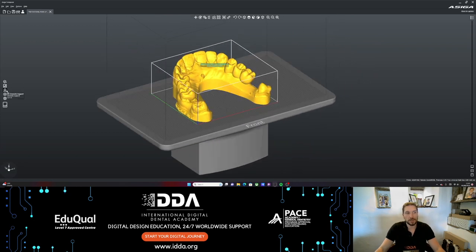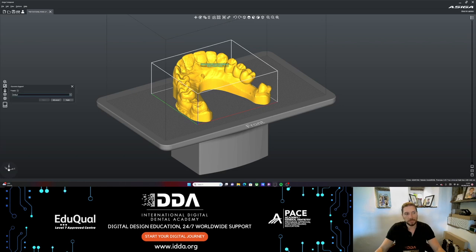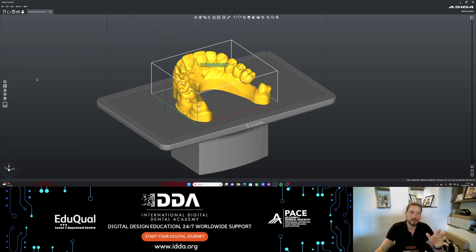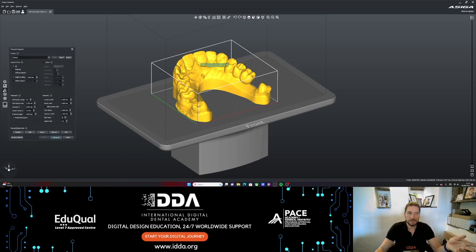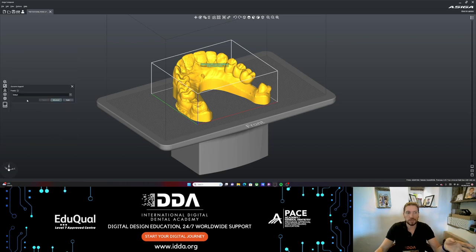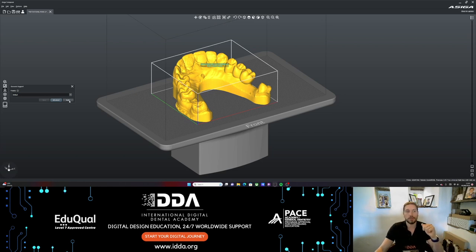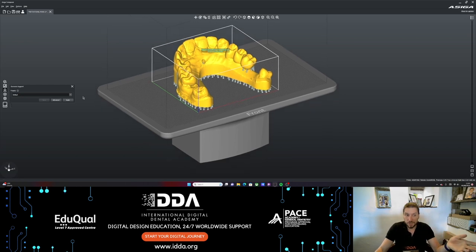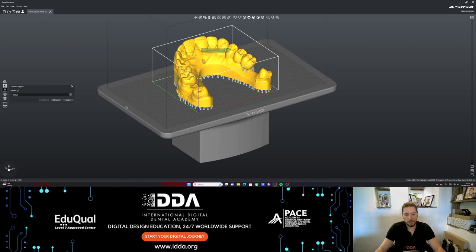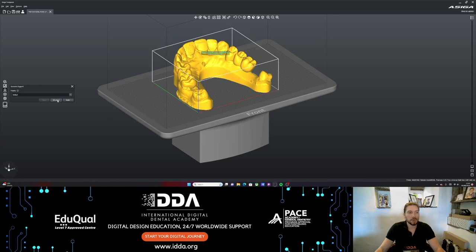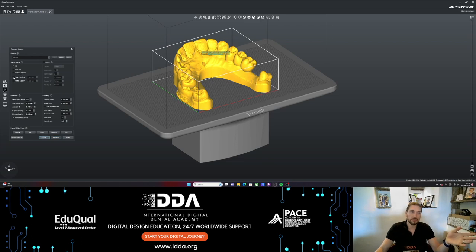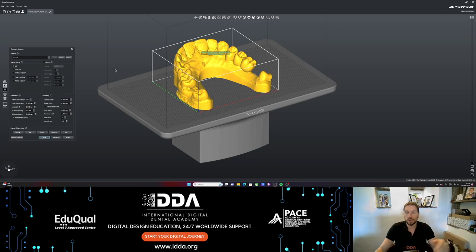Once we've got that in the right position, we can look at generating supports. I'm just going to use the default presets. We can go to advanced, but the nice thing about the new software is we have the ability to keep it really simple, just clicking on the support, clicking apply, and it'll do it. There's one problem with that and I'm going to show you. If I click apply, if we have a model like this, we don't want this to be lifted up. We do need to go to the advanced settings. I'm going to click control Z, go to advanced, and this is where we would take off height leveling if we're printing a model. We can save that as a different preset, like model no height leveling.